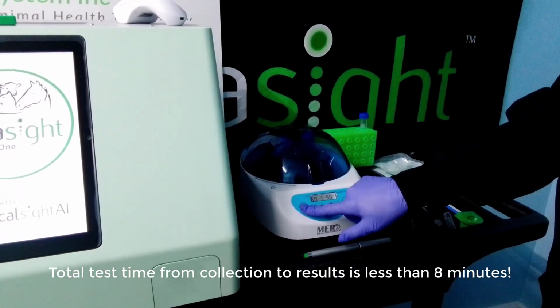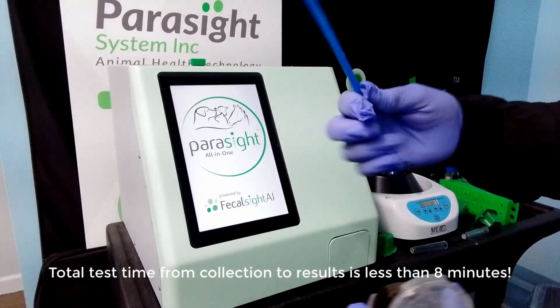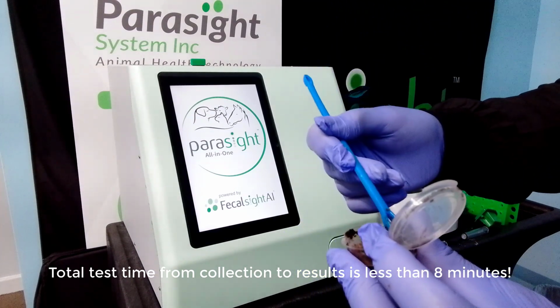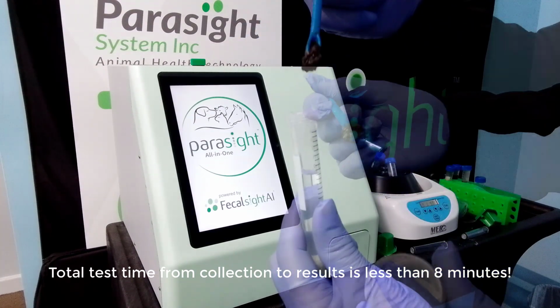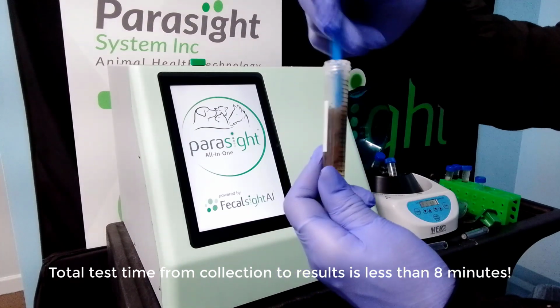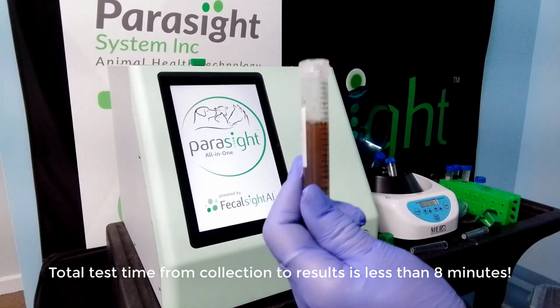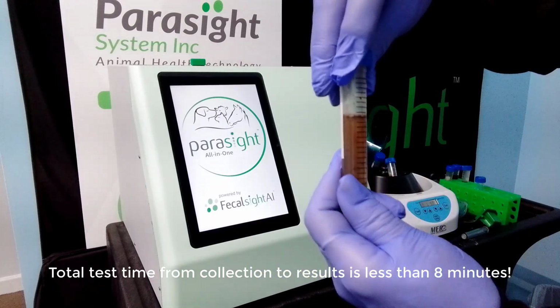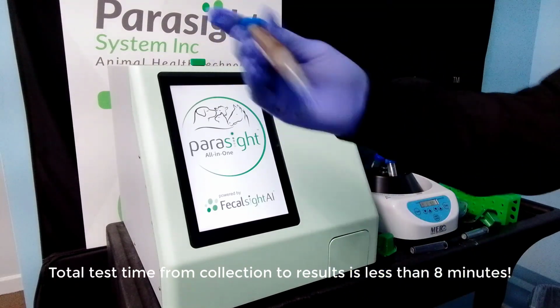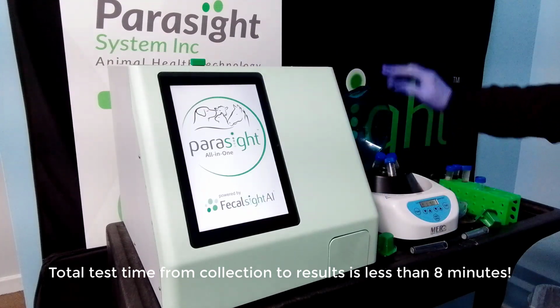The same process applies to a loop sample. Collect a fecal sample using a loop tool and add it directly into the pre-filled centrifuge vial. Swirl the loop tool within the vial to release the sample. Secure the cap tightly and shake vigorously. Place the vial into the centrifuge and spin for 1 minute.